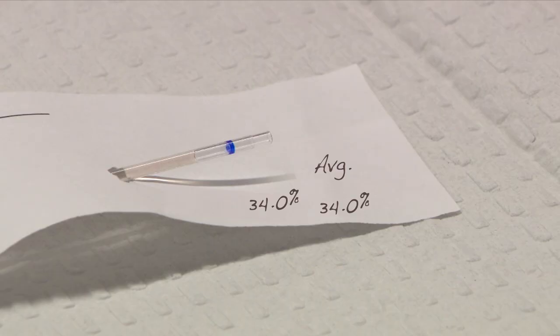We will take the average of the two values and we will report a result to the nearest 0.5 percent. So our final control hematocrit value is 34.0 percent.